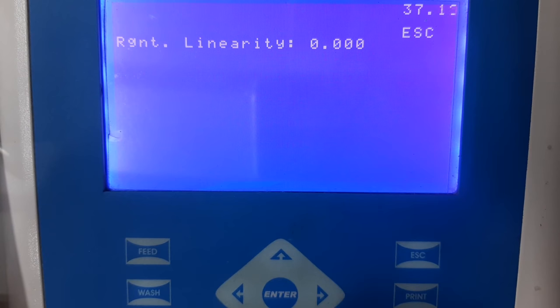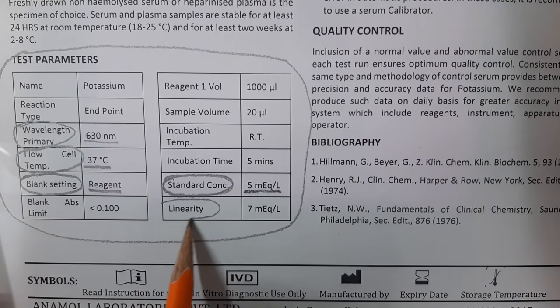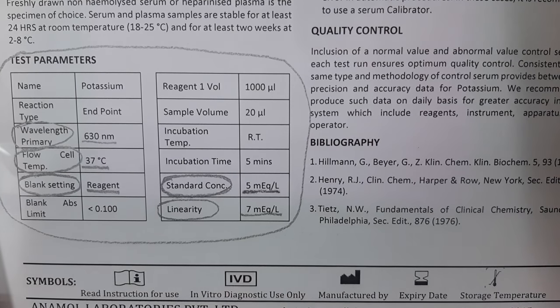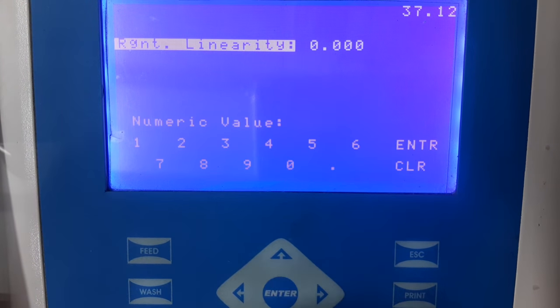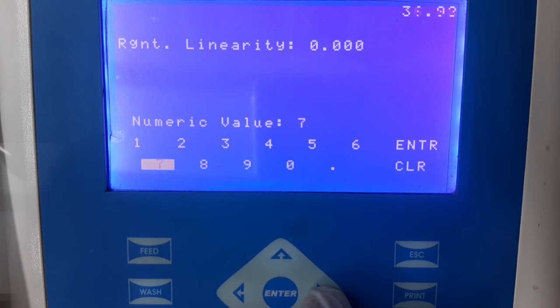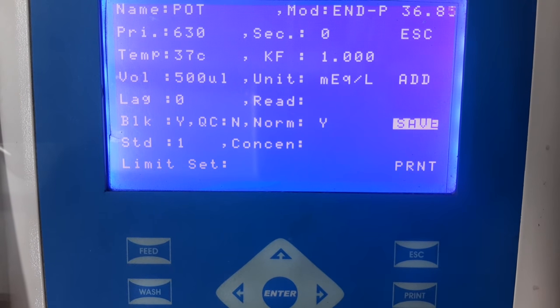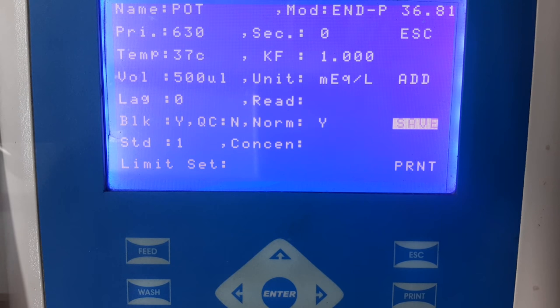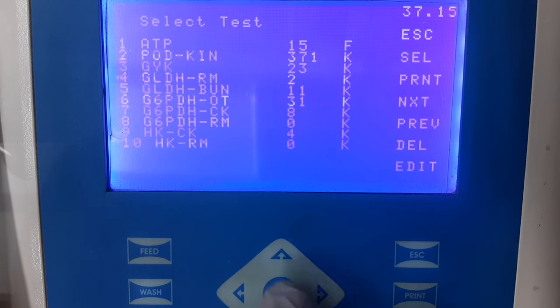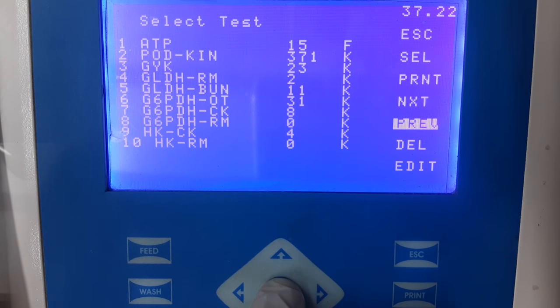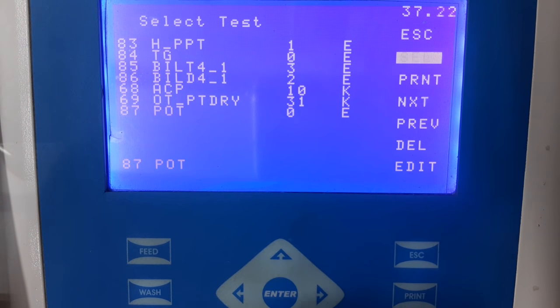The next information is limit settings or reagent linearity limit. This information can be seen in the instructions for use, where the manufacturer clearly mentions what the linearity of the kit is. Select the option of reagent linearity, enter the numerical value mentioned in the instructions for use, press enter, and escape to come back to the home screen. All required information has now been entered. Select the save option. To view the test, select list test and go to the window where the program has been saved — in this case, saved on option number 87. Select it to enter the program.